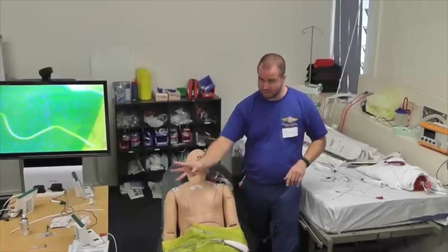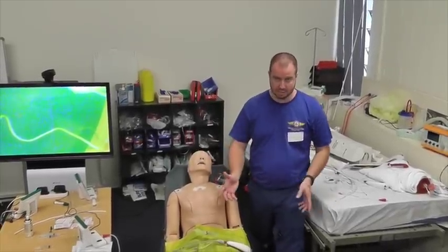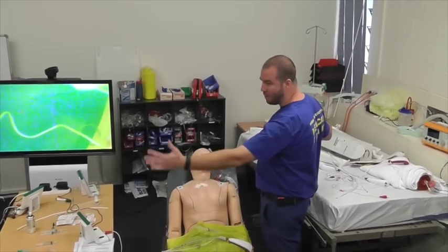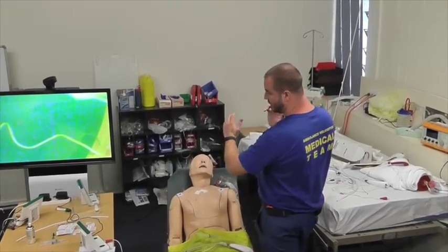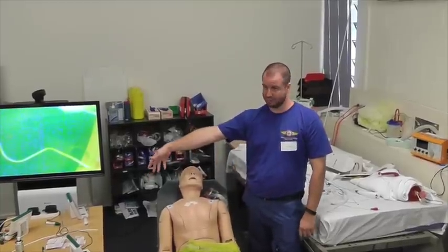3 holes, 3 drugs. The next thing to think about is the positioning of your room and your furniture and your kit. So certainly you want to make the ergonomics suitable so that when you're doing a procedure you can see your screen, you have your drugs prepared and everything set up and your airway assistant briefed.